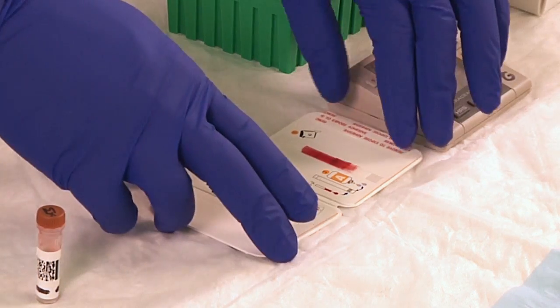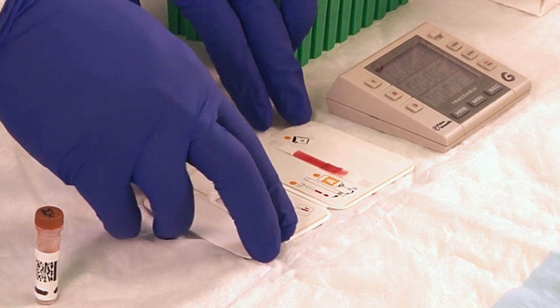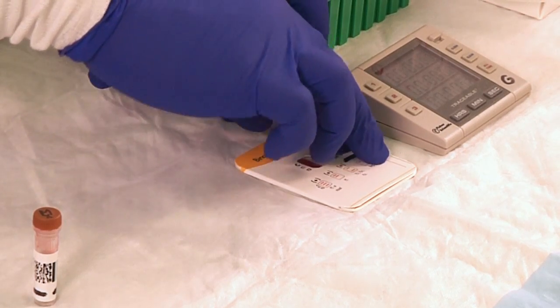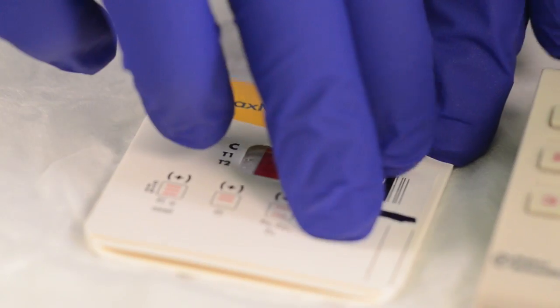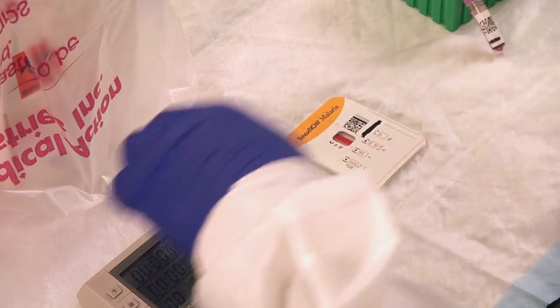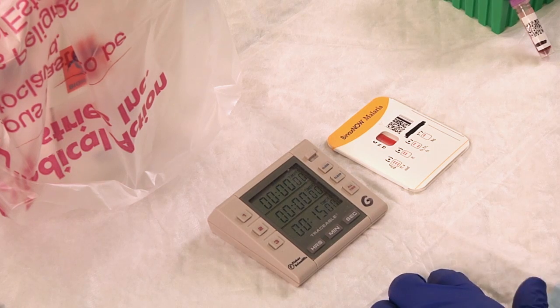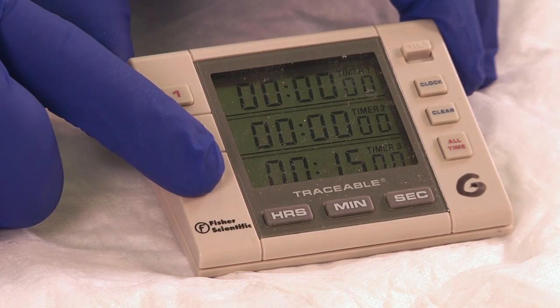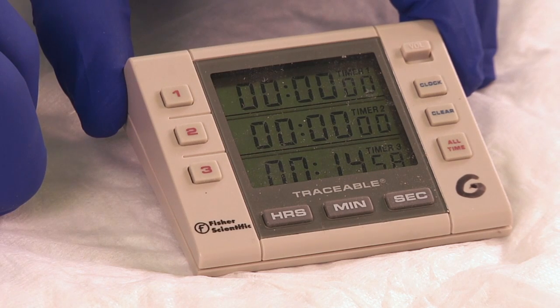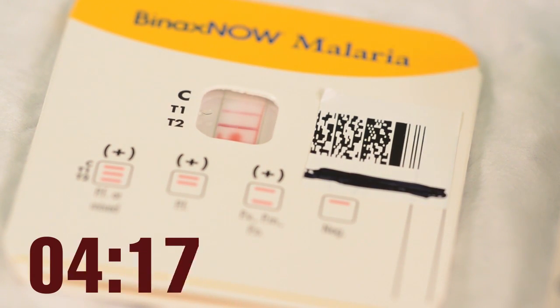Next, remove the adhesive liner from the right edge and close the device. This allows reagent A to wash or clear the blood from the test strip. To ensure good device closure and test flow, press very firmly along the entire edge to the right of the test window. Set the timer for 15 minutes. After 15 minutes, read the test result through the viewing window.